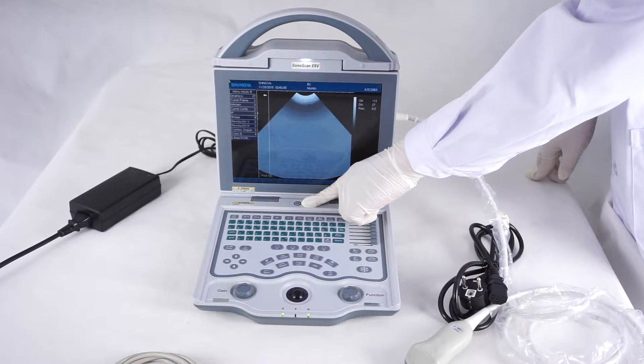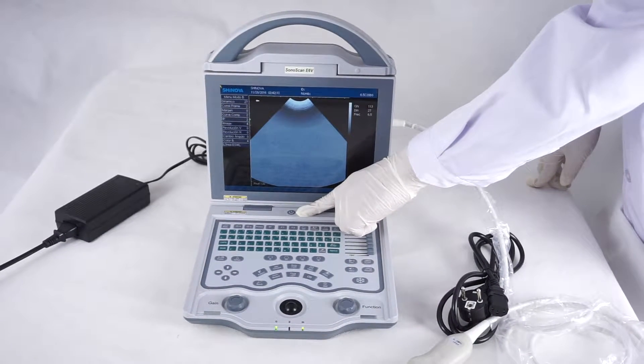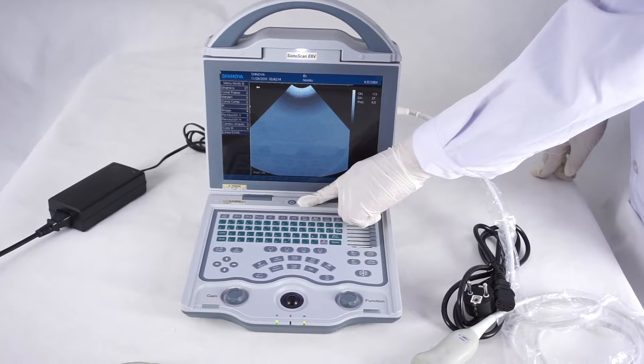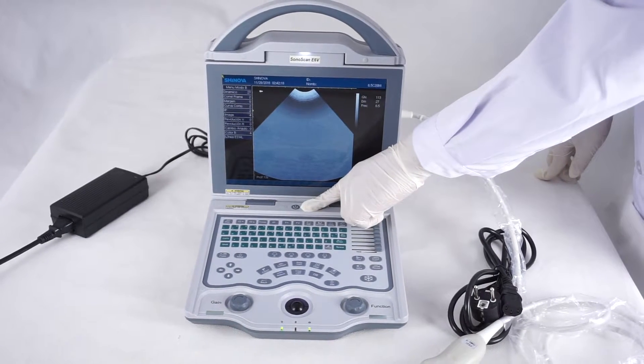Now let's open the machine and see the light. We can use it. If it's dark, you can open this.